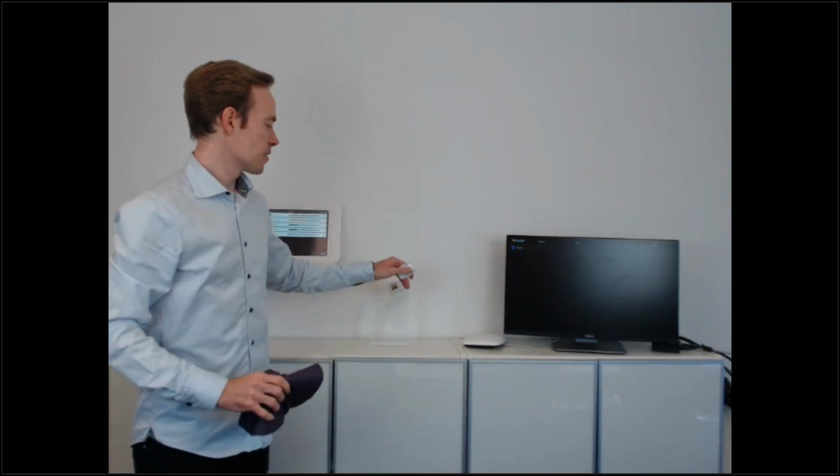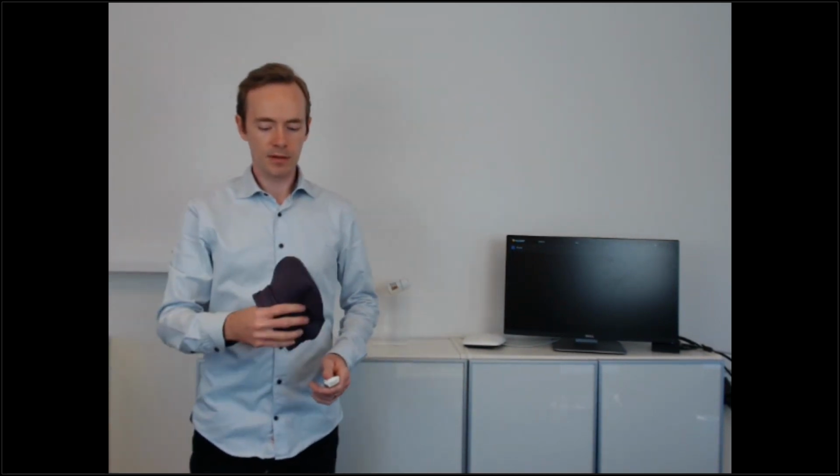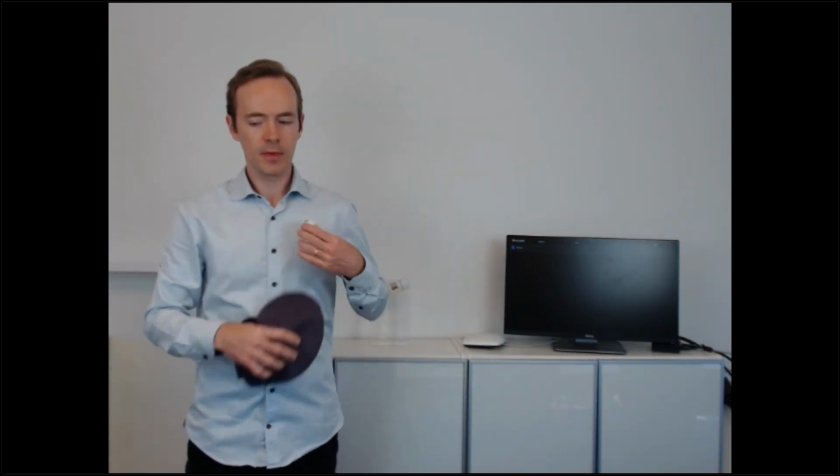All right, and while we're at it, I'd also like to mention a couple of details about usage. So this one goes outside the lead apron. I didn't wear one today because this radiation source is really weak. But if this is a lead apron, I would put it outside. I would put it facing the radiation. And if I'm right-handed, standing by the patient, I would normally wear it on the left side of my chest.